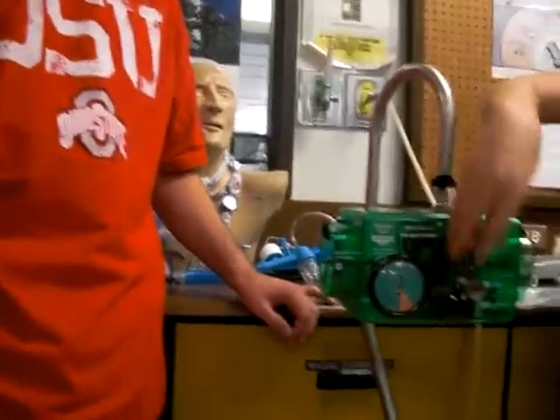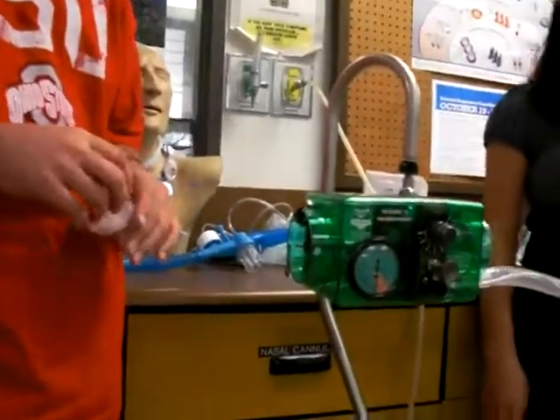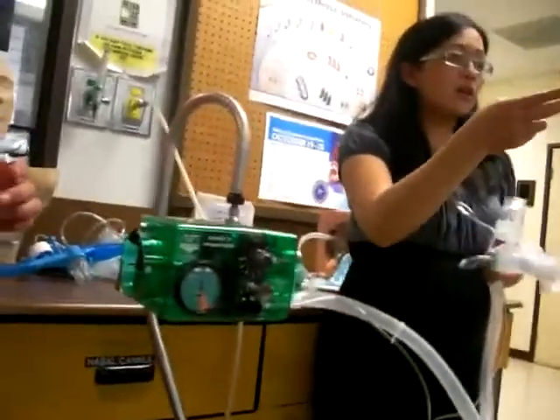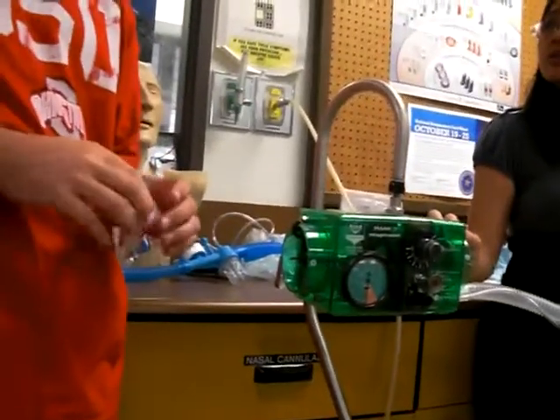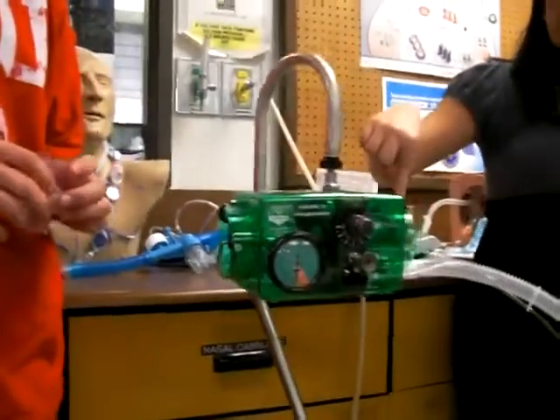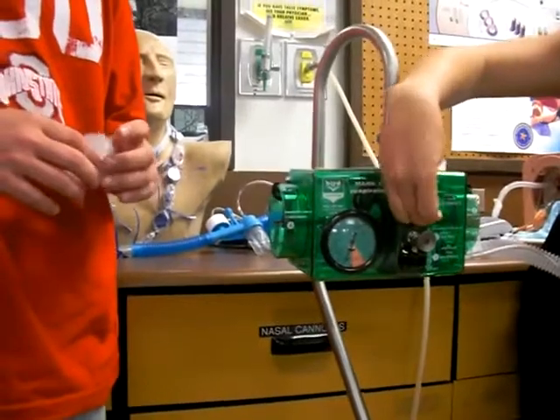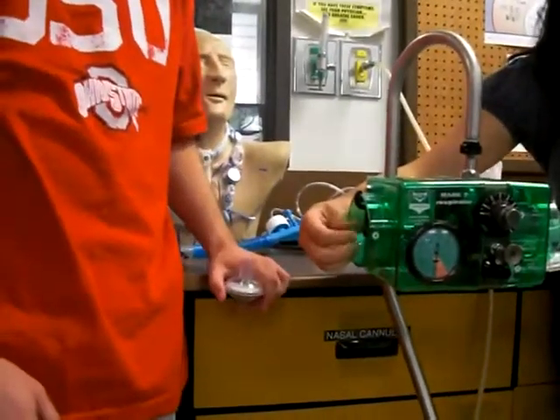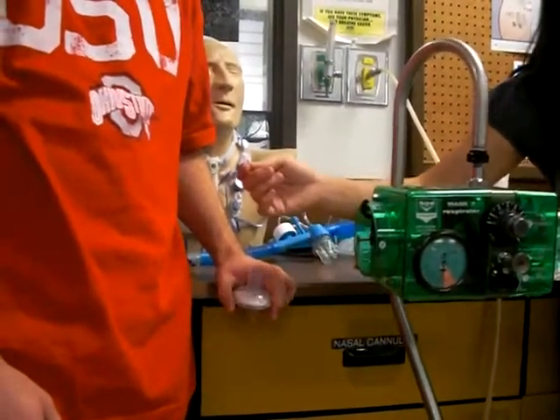So one on the left, one in the middle, and one on the right. Patient triggers with a seal. How do you set it — where would you set it first, how do you start? So it's easiest to just do it at 15 — the flow at 15. And remember the hand timer rod, the red thingy — push it in to start, pull it out to stop.